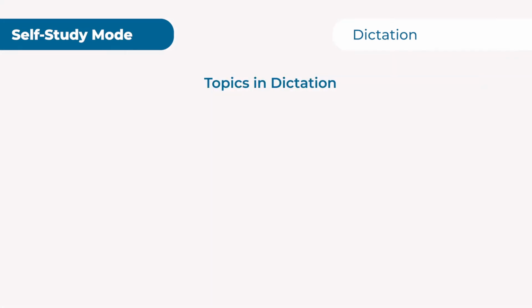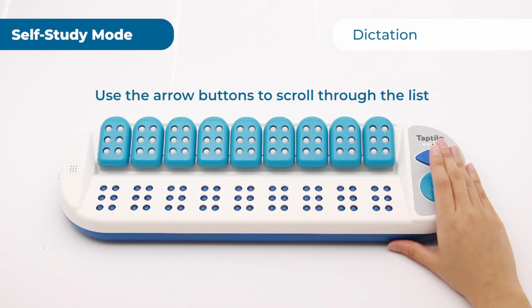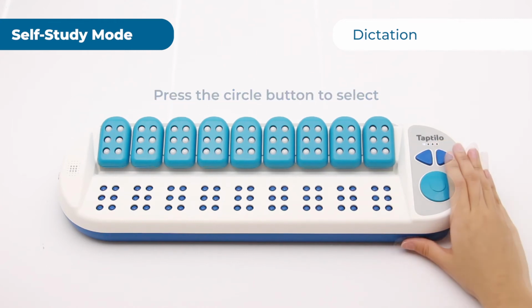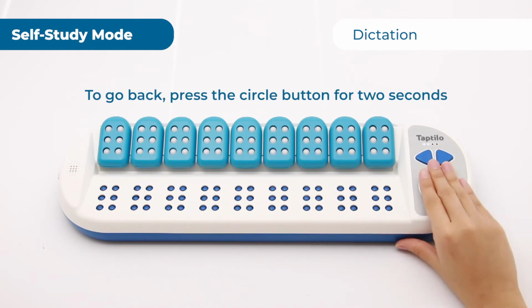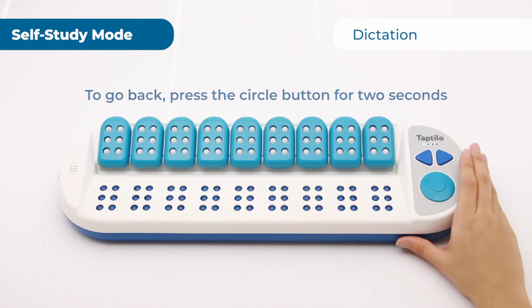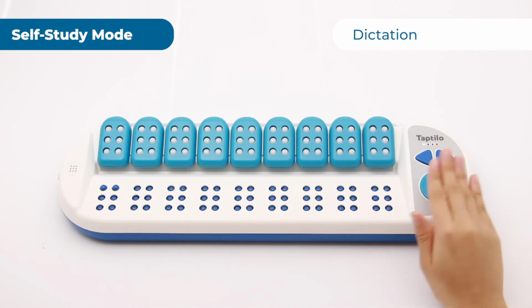Here you can also choose among 4 topics: number, alphabet, short words, and long words. Use the arrow buttons to scroll through the list and press the circle button to select. To go back to the previous list, press the circle button for 2 seconds. In this example, let's choose numbers.